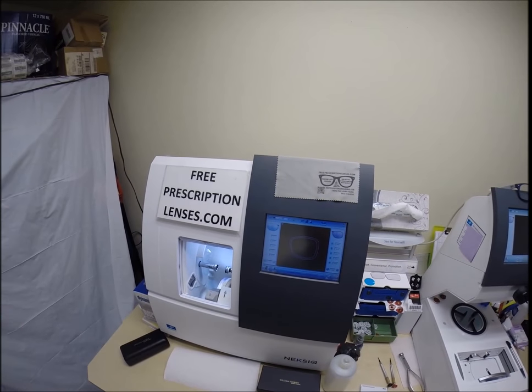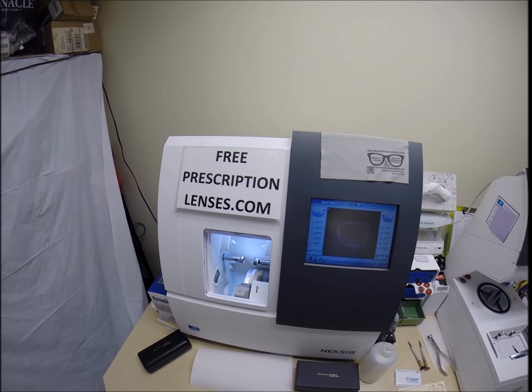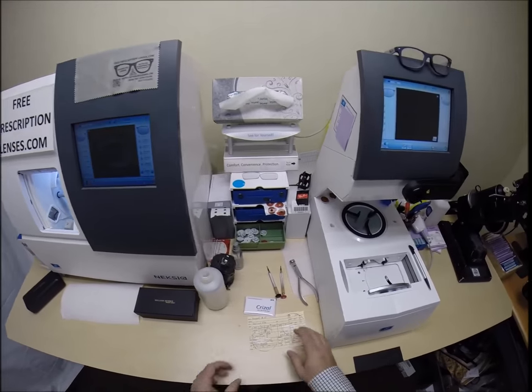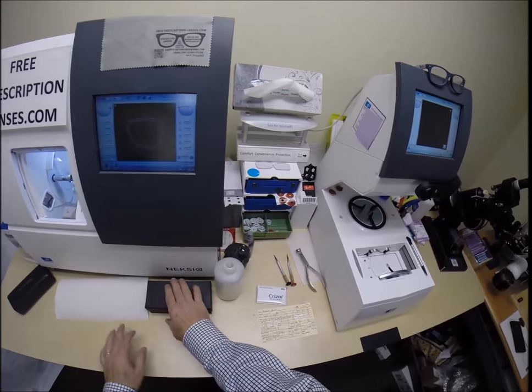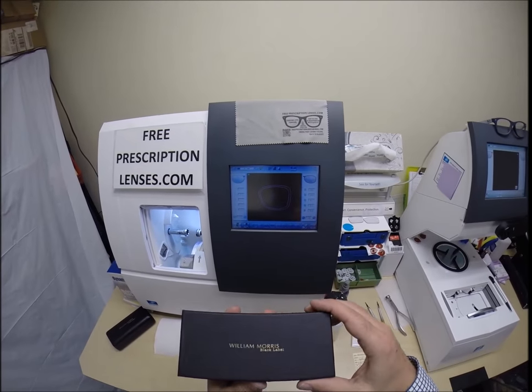Michael in Valrico, Florida. See more better with freeprescriptionlenses.com. Today I'm going to cut your invisible bifocal with anti-glare for your William Morris Black Label.